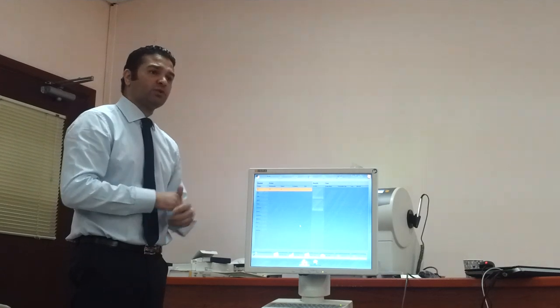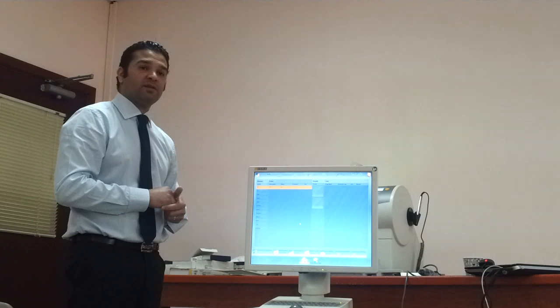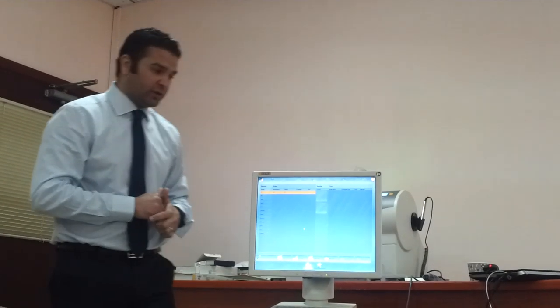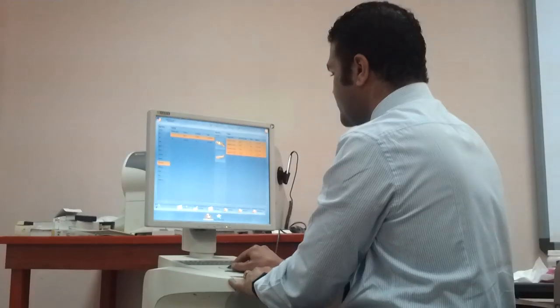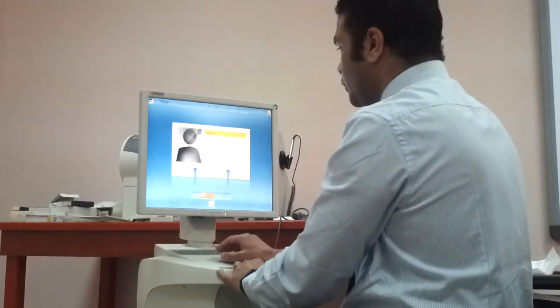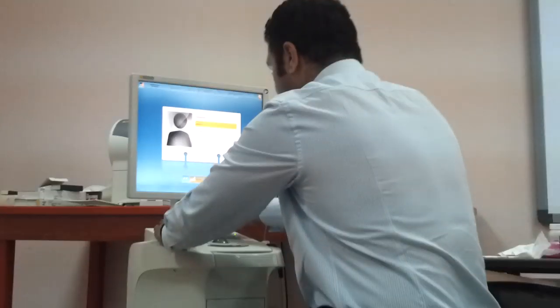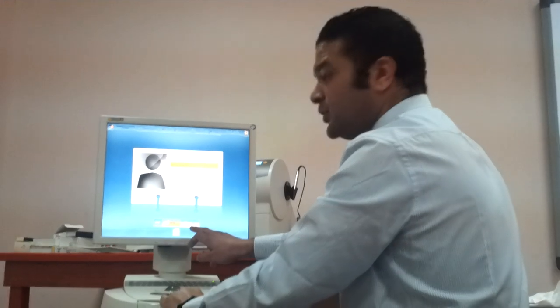I will give you a short demo for a crown, and hopefully we have some time for a quick bridge demo, so you can understand what's going on with this software available at your university. We'll go here to understand our case — add a new order, write down the patient name, and administrate a new case.